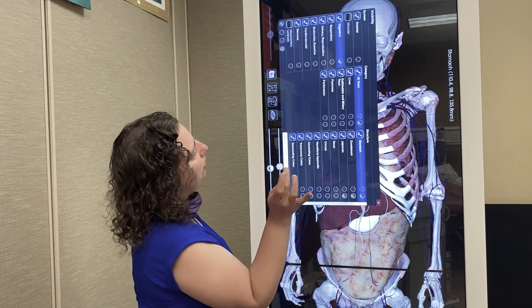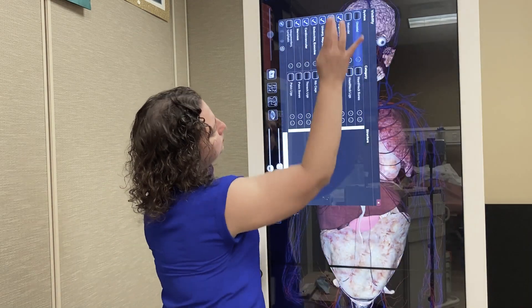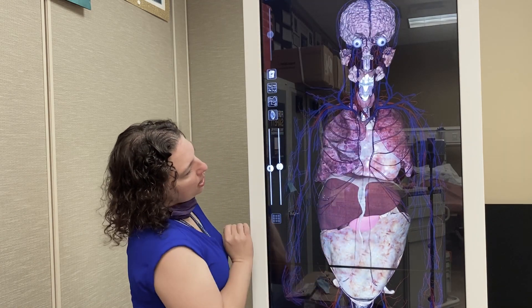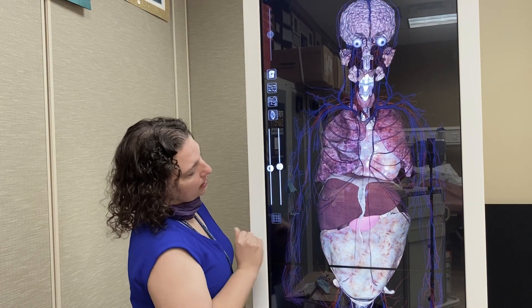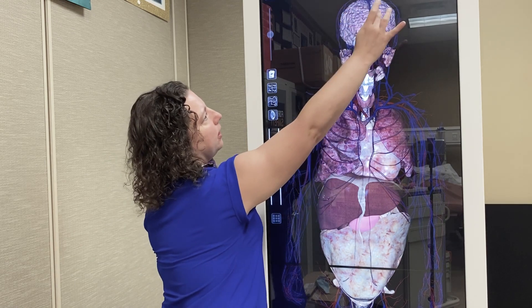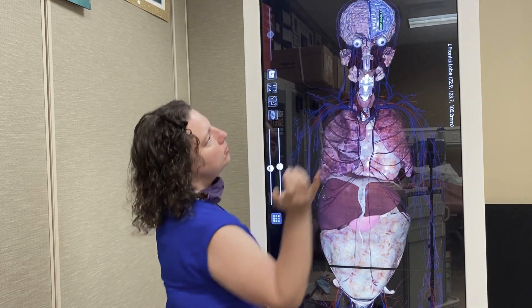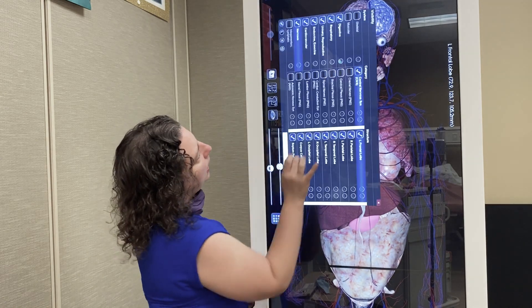If I remove the skeletal system, I can now show you what that looks like without the skeletal system. Again, tapping on areas to be able to show right frontal lobes and left frontal lobes.